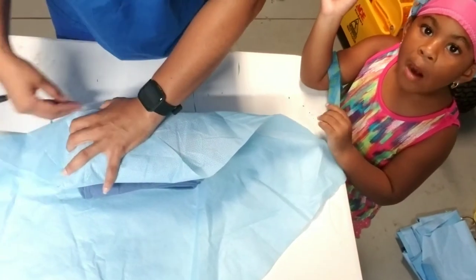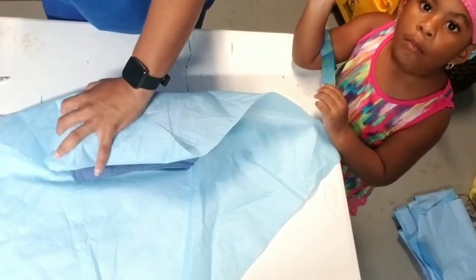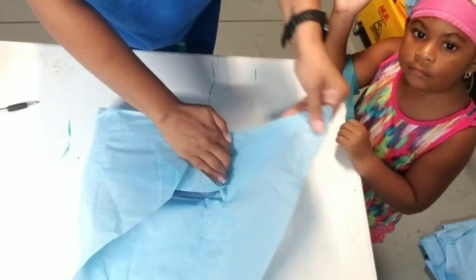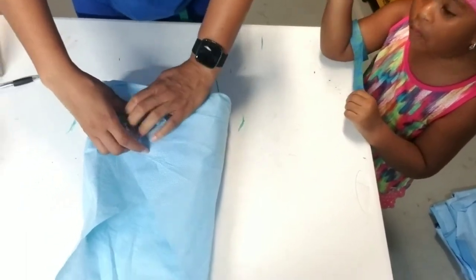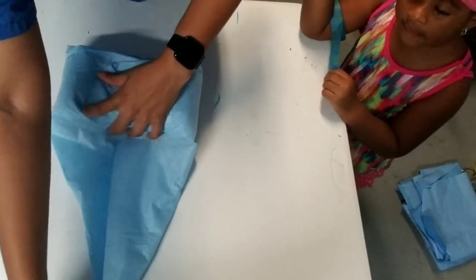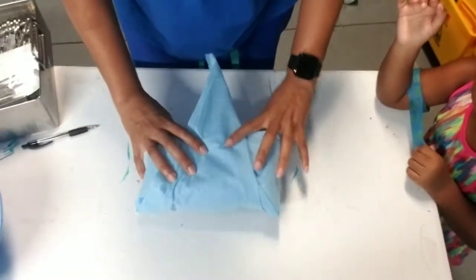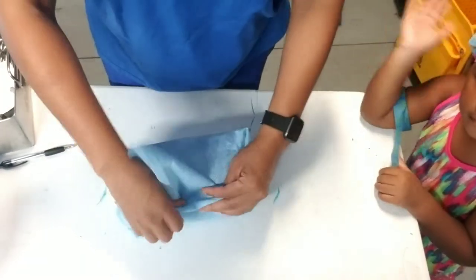Again, the tab closest to you — come up and over. Right side: I like to tuck it in so it makes it a little more taut on the side, then pull up and over. Left side, same thing — up and over. Make sure everything is nice and neat and tight. Final flap up and over, then tuck it into the mouth of all the folds you made.